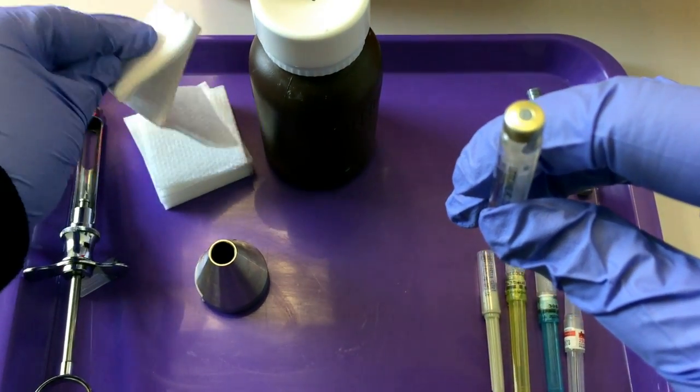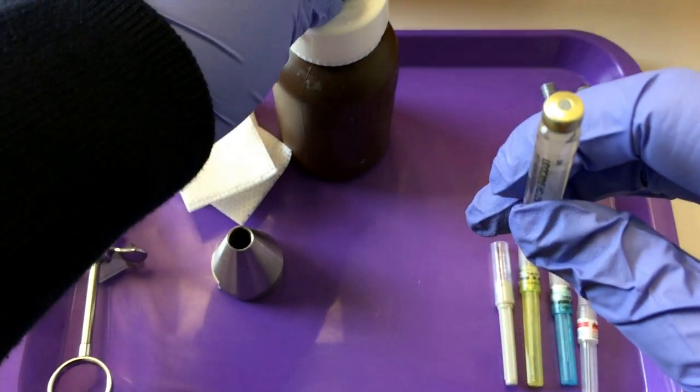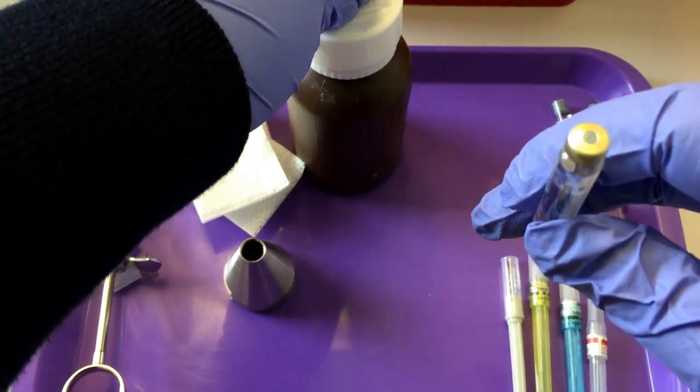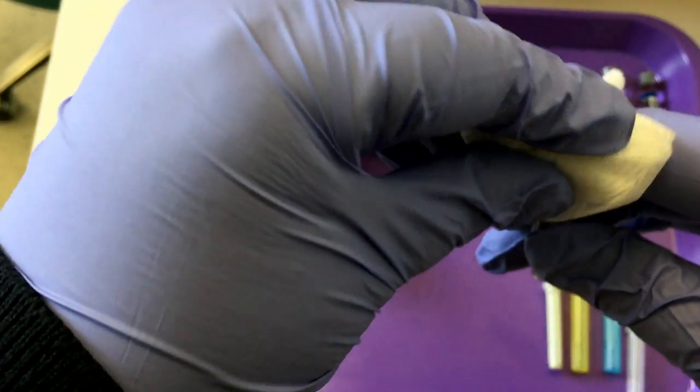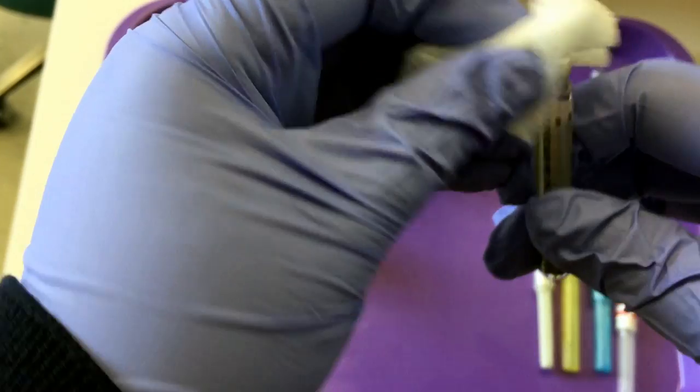What we want to do is clean the diaphragm. We do that with some alcohol. Just rub the diaphragm and let it dry.